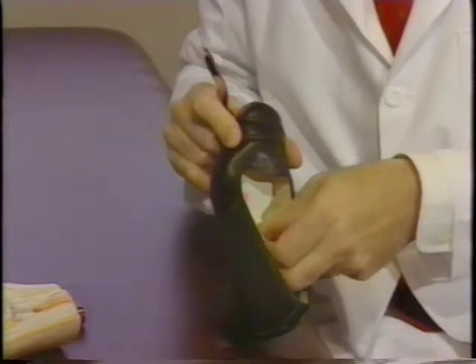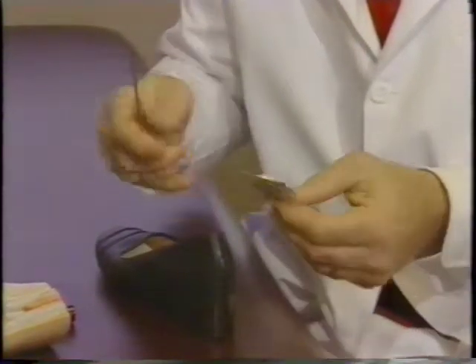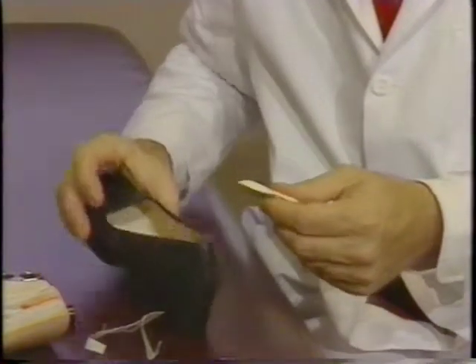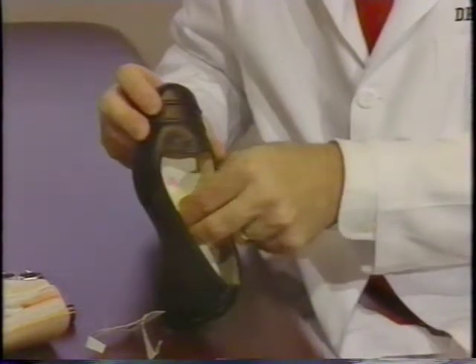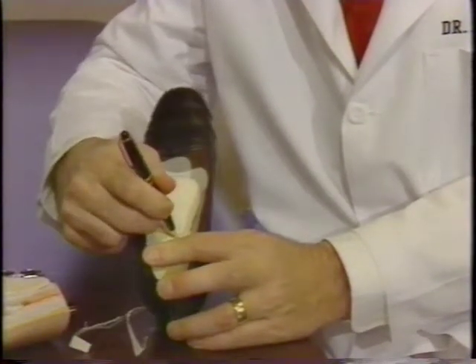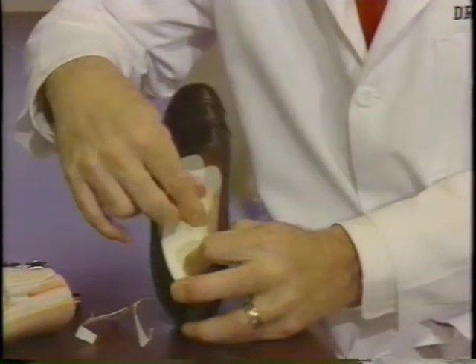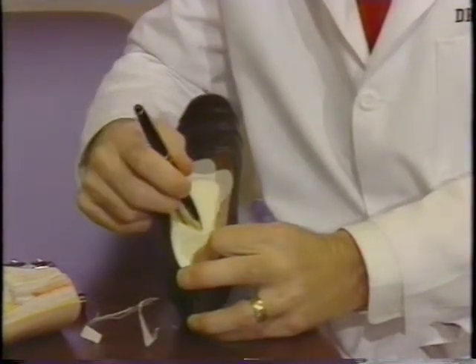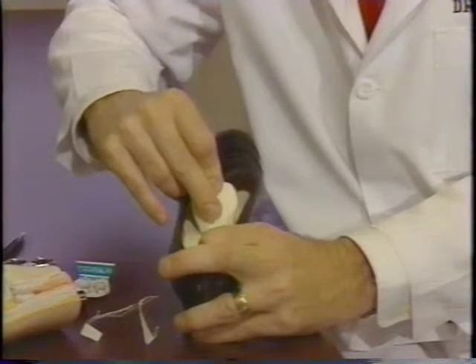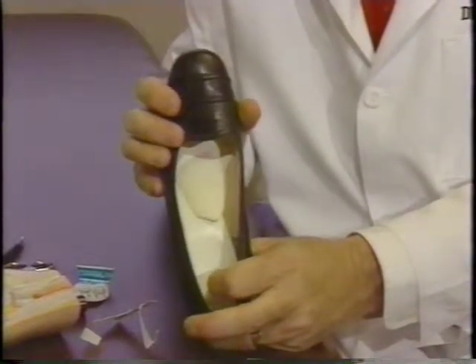If you're not exactly sure where it is, peel the wrapper back just slightly, as we did with the larger pad, then carefully trim around it so there's not a lot of paper inside the shoe. Stick it down the same way. Try it on — if it needs to be moved forward or back, make another mark and decide the best position. When you've found the right position, make your final mark, remove the pad, take the wrapper off, stick it in place, slip your foot in, and step down to confirm a good fit.